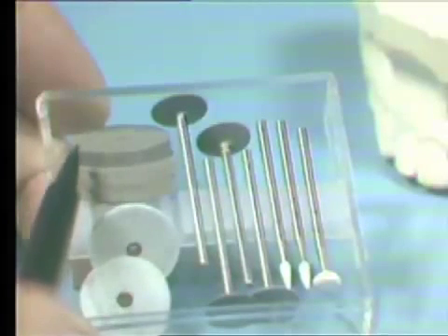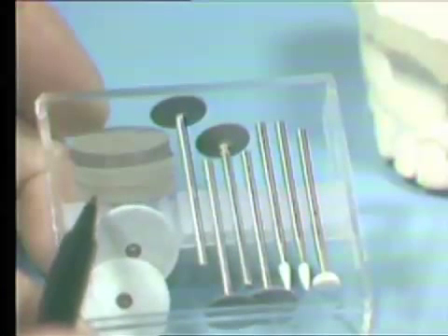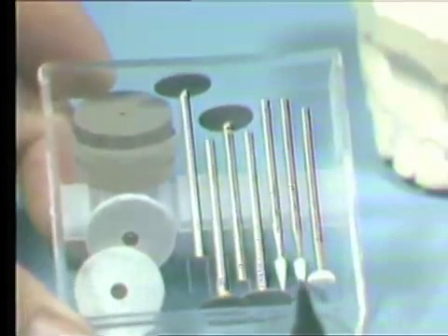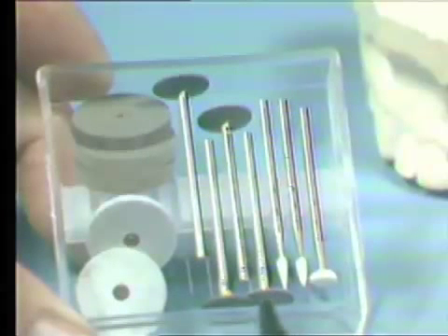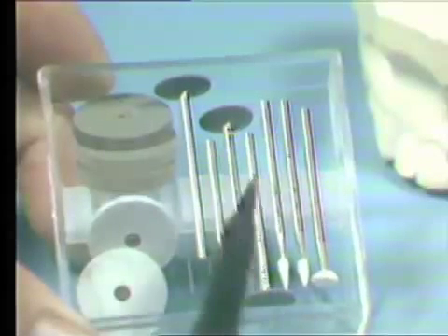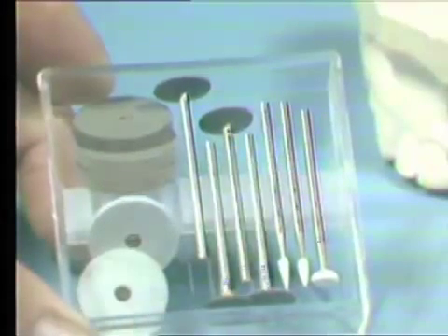There are also a series of rubber wheels. Three large wheels marked Standard, which is the coarsest grit; Ultra, the next fine; and Ultra True, the finest, for final finish. Also, a series of knife-edge rubber wheels is included. Standard has no marking on the shank. The Ultra has one heavy yellow band, and the Ultra True has two thin yellow bands.